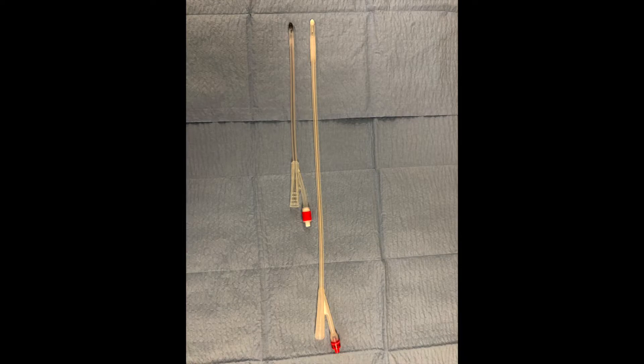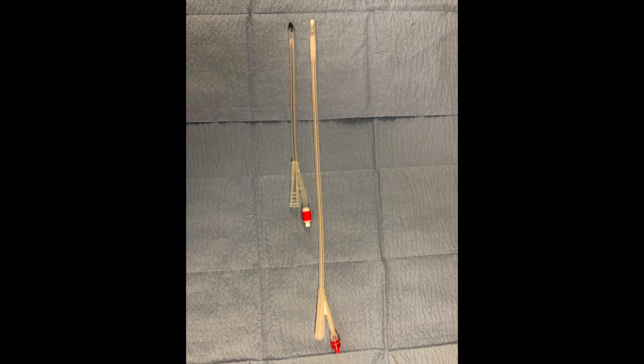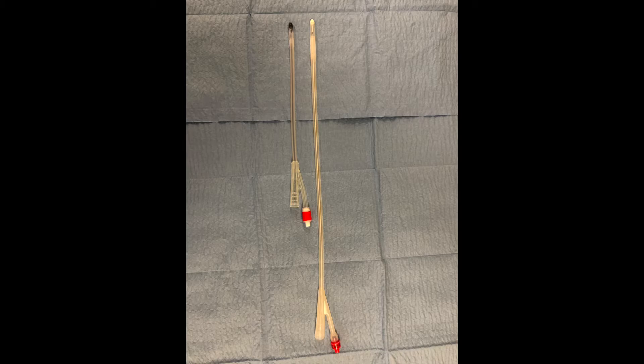This is a female catheter beside a male catheter. It is considerably shorter because the female urethra is only approximately 4cm long, and therefore it is not necessary to put in a male catheter.